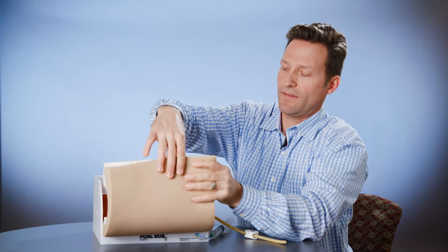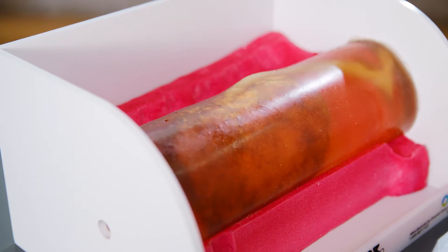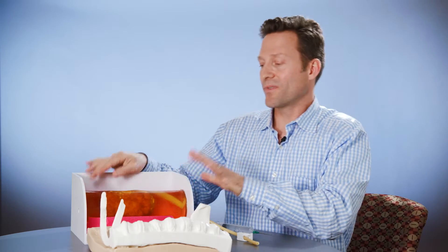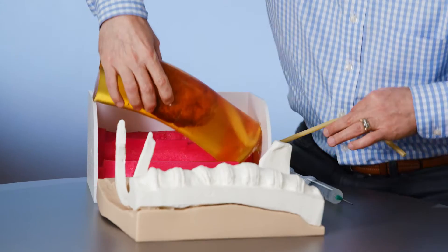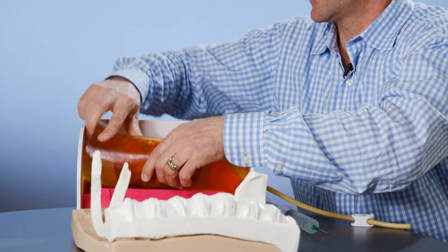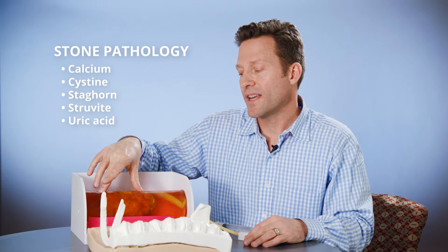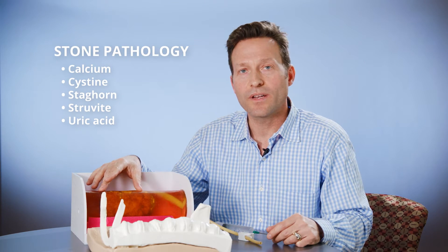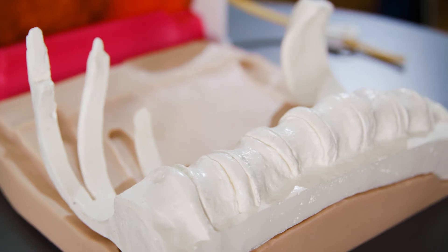Inside is a highly reusable kidney trainer — again, very lifelike. What we have here is really the crown jewel of this surgical trainer: a replaceable kidney insert which mimics an average adult-size kidney. We can include or create any type of pathology, whether two to three centimeter stones or the large staghorn stones.